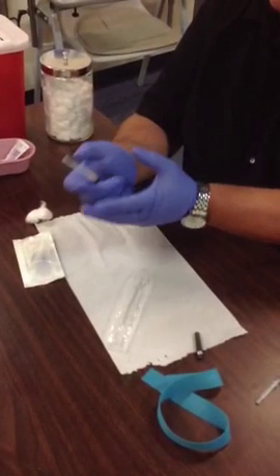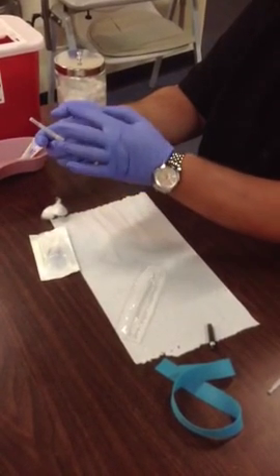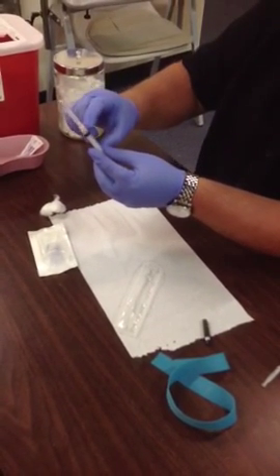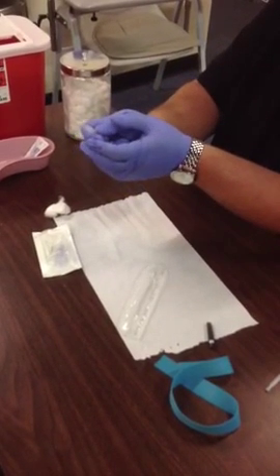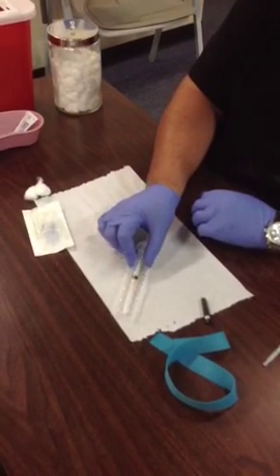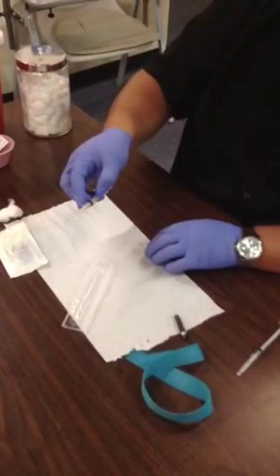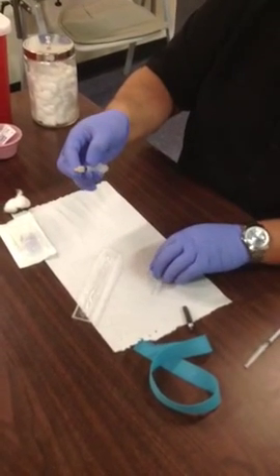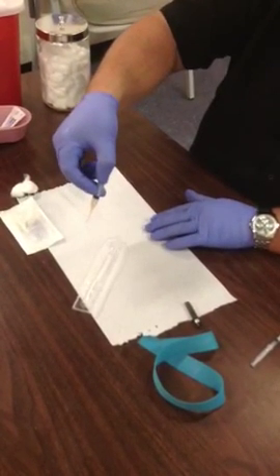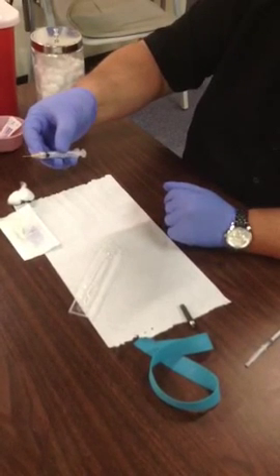I'll show you how to grab the syringe barrel with three fingers and the palm of your hand, and then with your thumb and index finger, grab the base of the cap. The cap is the long portion; the barrel is the bottom portion. Grab the bottom and push the top forward until the cap is loosened. Don't take the cap off at this point — place it back into the sterile compartment until you're ready to use it. When you're ready, let the cap slide off, which exposes the needle. Make sure you're about 10 inches above the table surface so your needle doesn't touch the surface or any supplies and contaminate the needle going into the patient's arm.